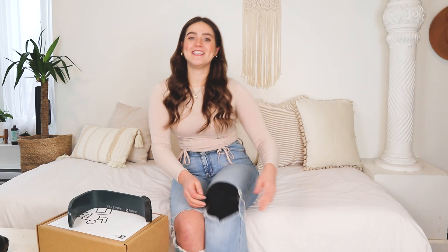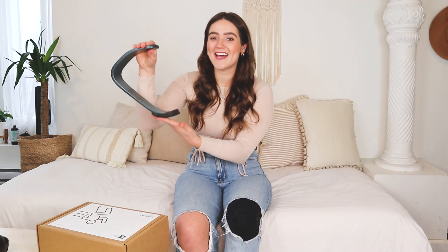Hi, my name is Alison Lang, and for those of you that don't know, I am a below-knee amputee. Today I will be assembling my new running leg. They sent it to me — the shipment took like three to four days tops. They chatted with me online and got me prepared for what size of blade, which is incredible.